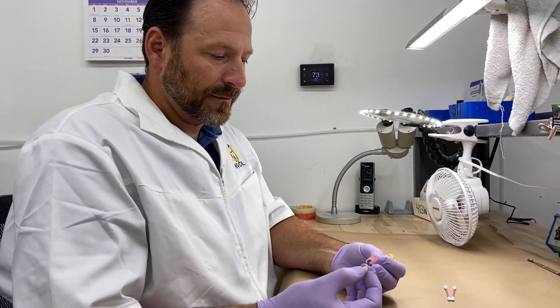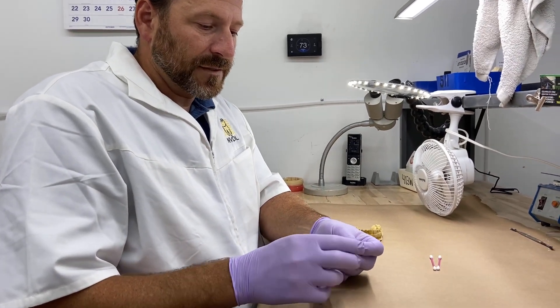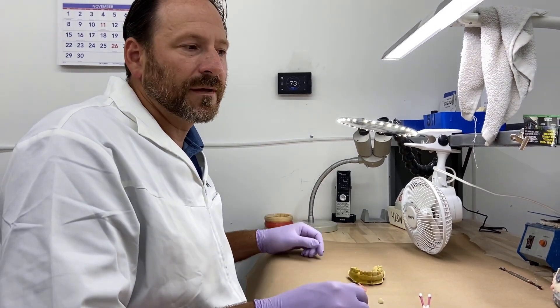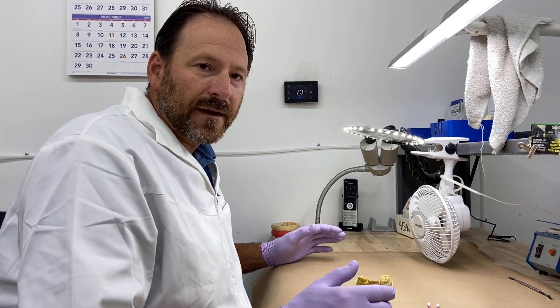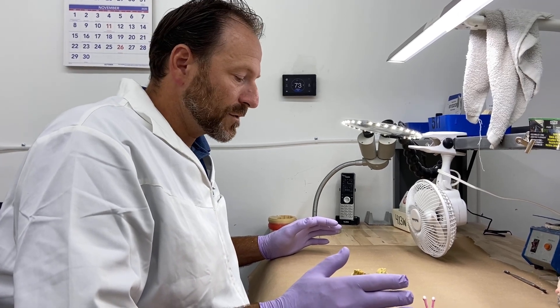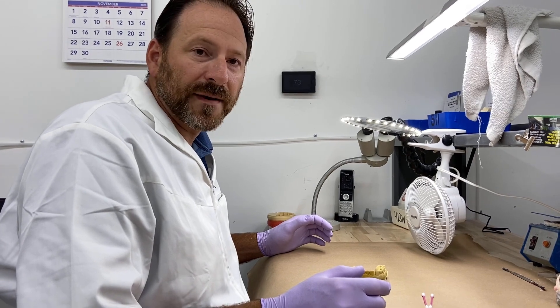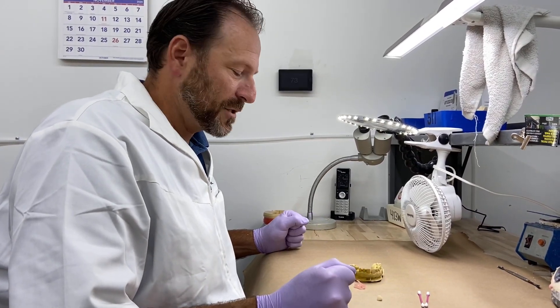So this is what I'm talking about here. We have a unilateral and a tooth that's been designed to fit into the socket of it. I've had a lot of questions on this and it's kind of not an easy thing, because DuraFlex is so resistant to anything adhering to it. That's great for stains, bacteria, and smells, but for luting a tooth to it, it has some challenges.